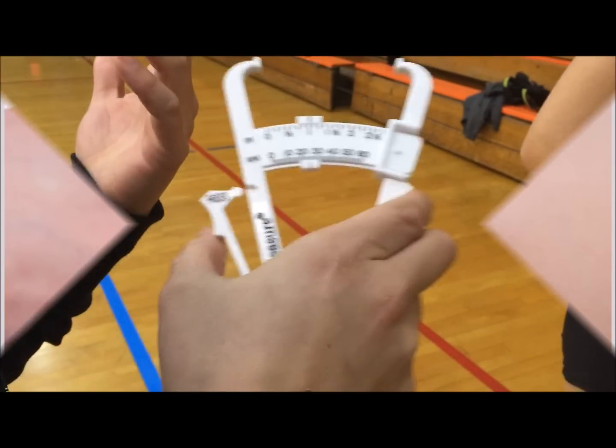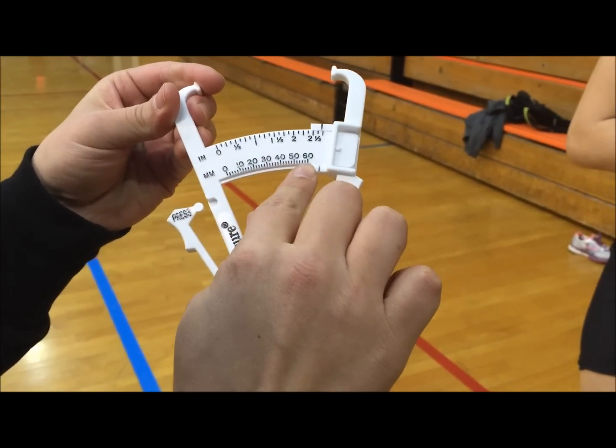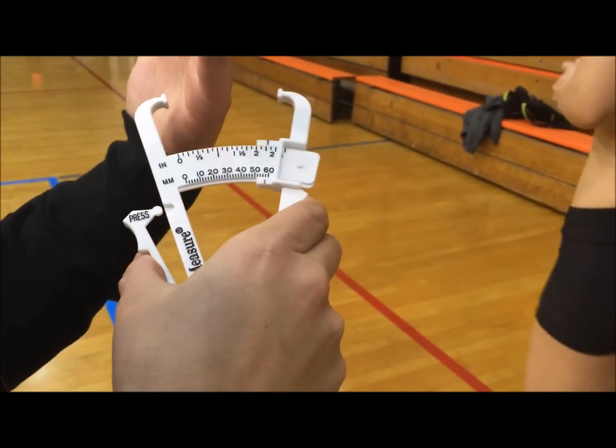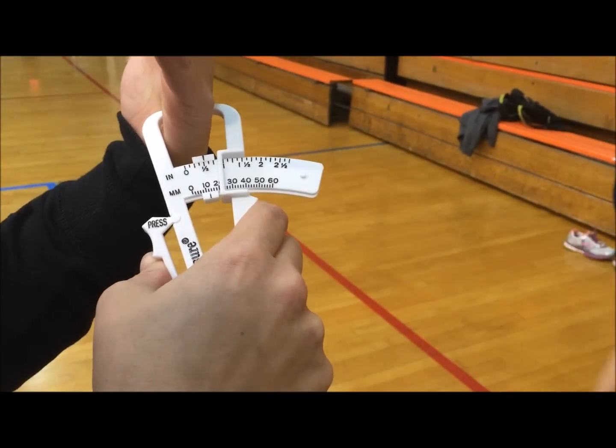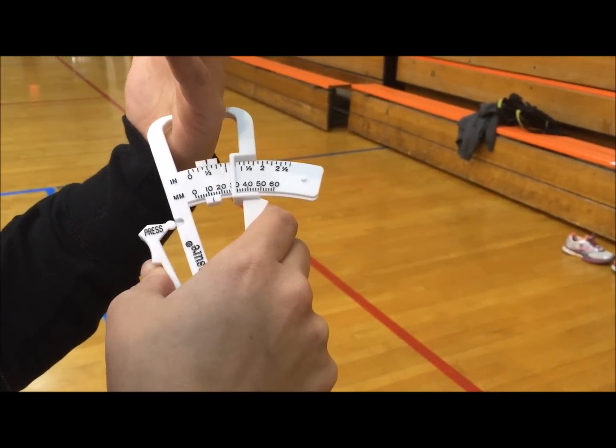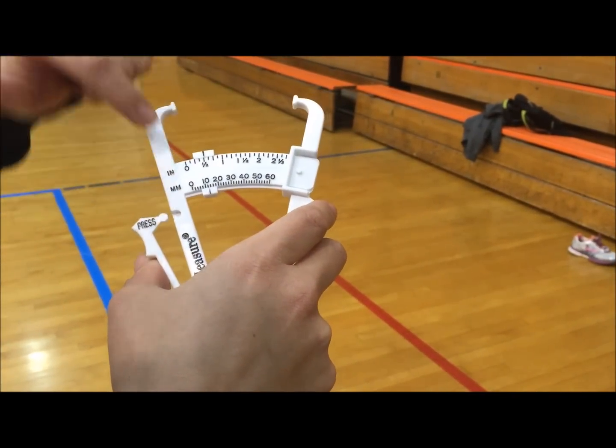The caliper we'll be using today is very unique in that it lets you know when a full pinch has been made and has a sliding reader for measurement, which is extremely helpful when taking measurements.